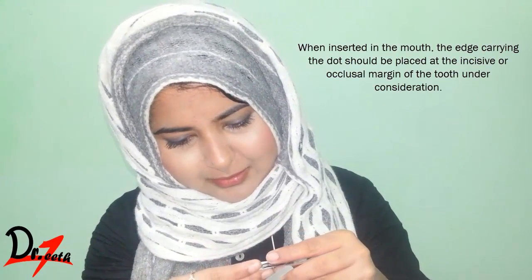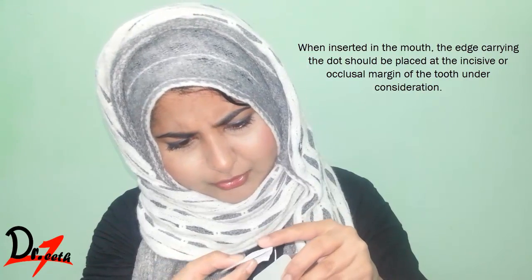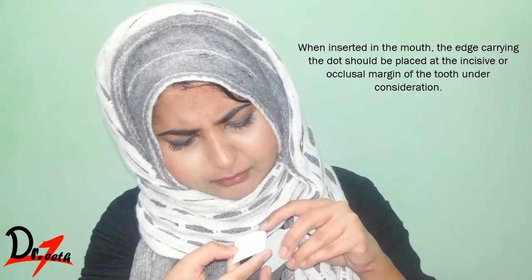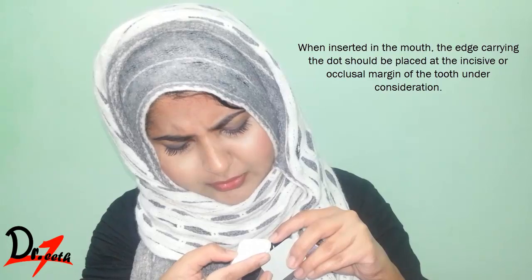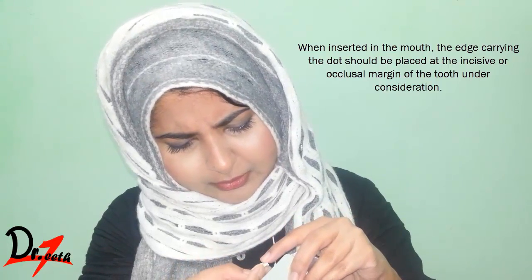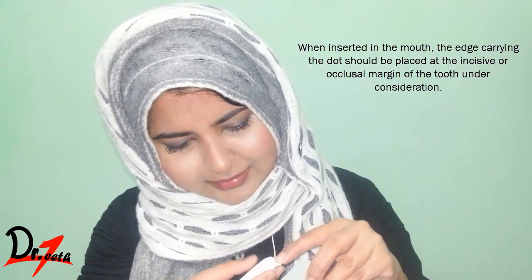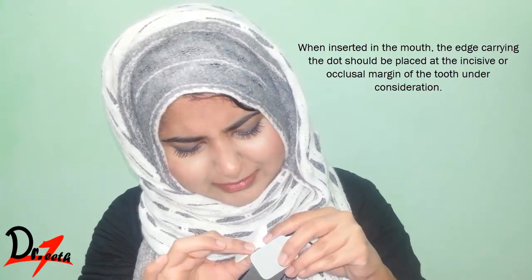I feel I'm opening a gift pack right now. So this is the lead paper. I think we call it the lead paper. And then we have, okay, I'll just go by sequence. So this is the lead paper.